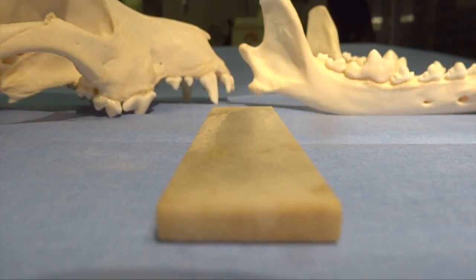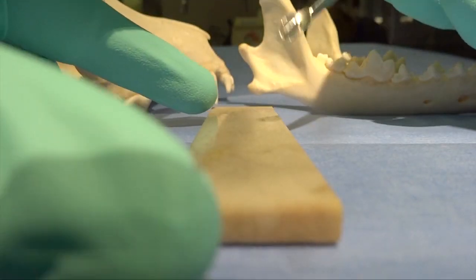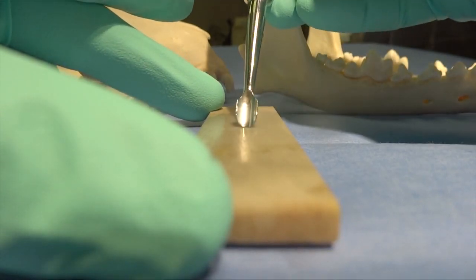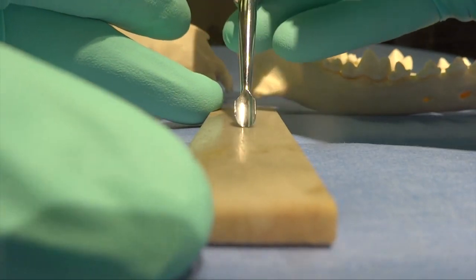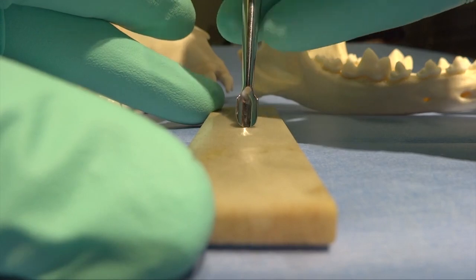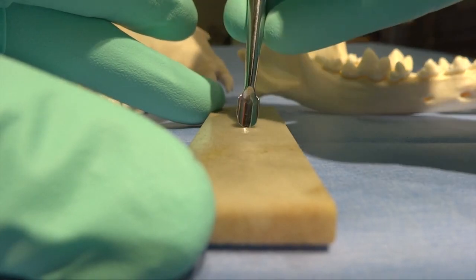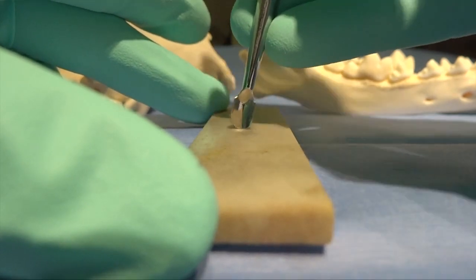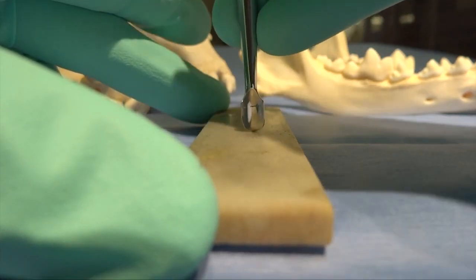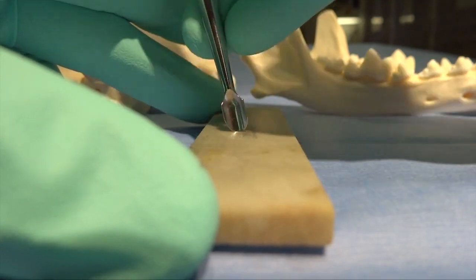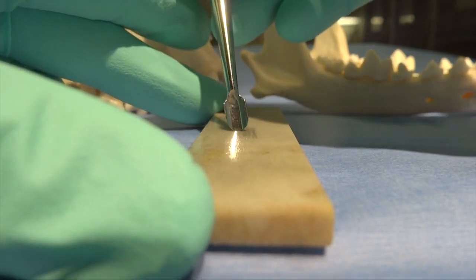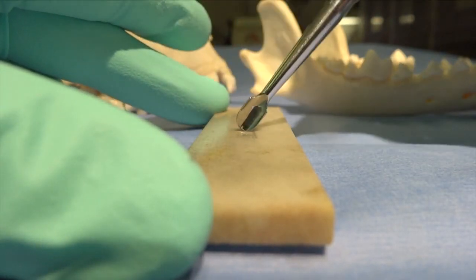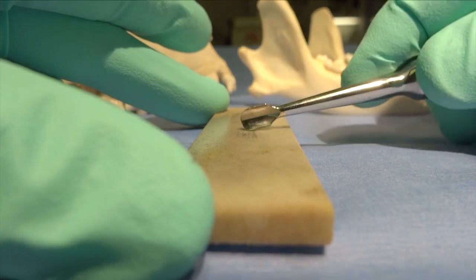You don't want any space between that blade and the sharpening stone when you're sharpening a curette. When we're sharpening our luxators, they are pretty much perpendicular, just like the periosteal elevator was. We want to go up each side of those if they're winged elevators or winged luxators like these are.